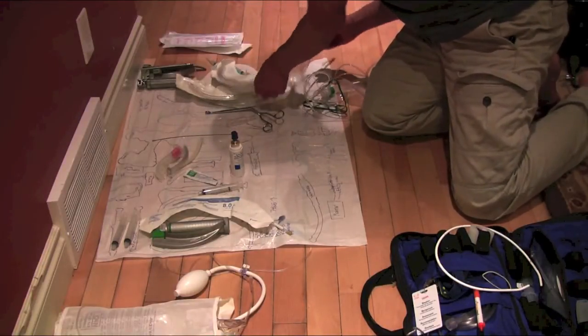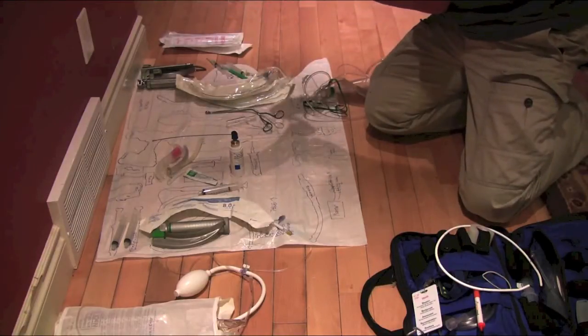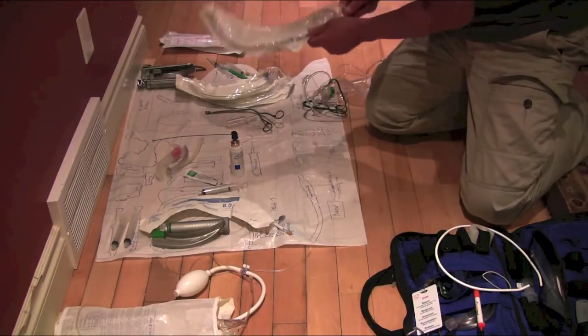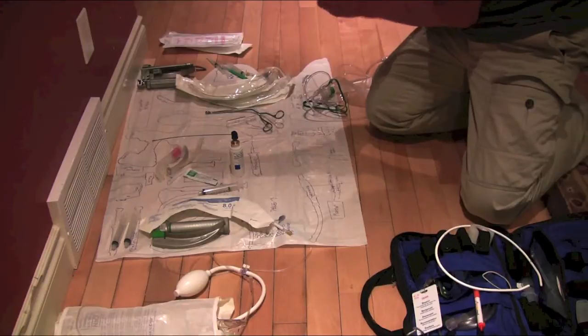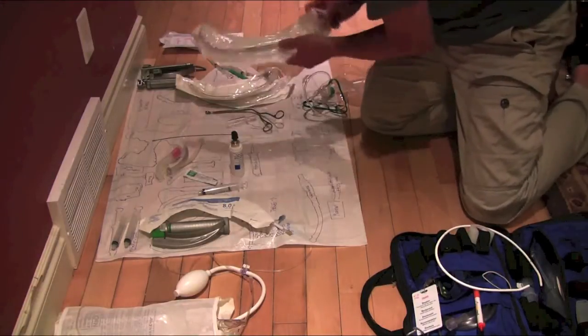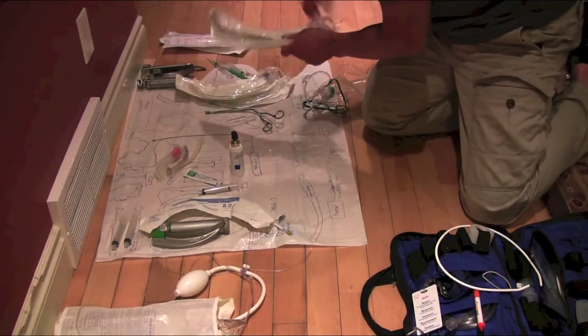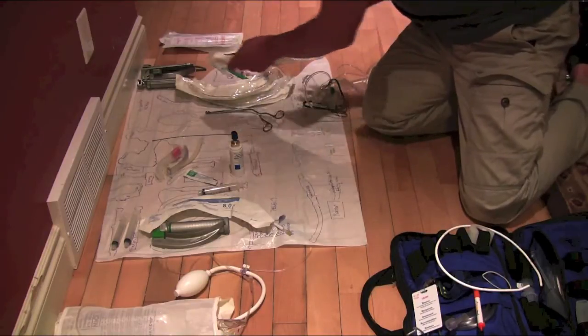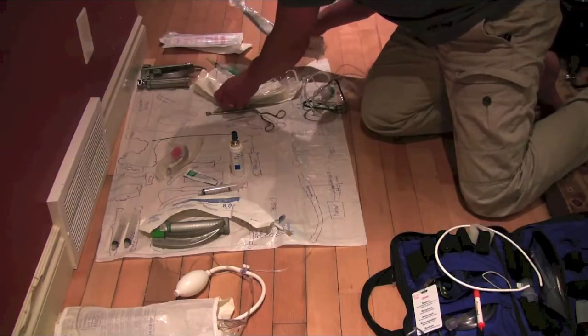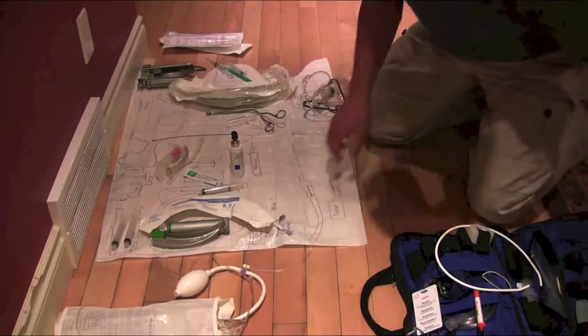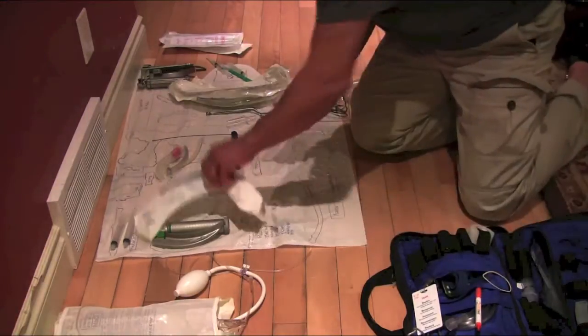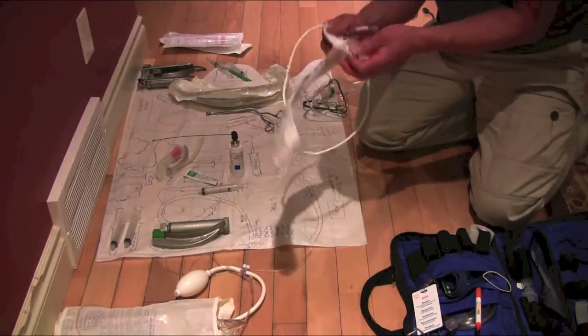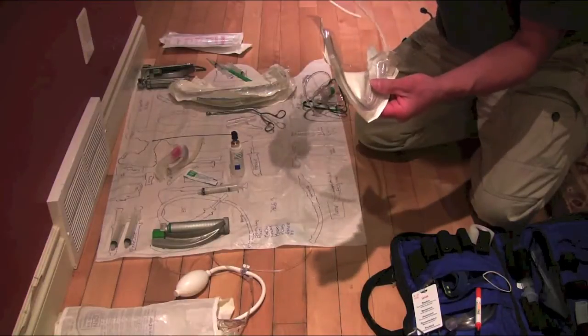I'm going to load up a stylet to the cuff on my 8 tube. Get my lidocaine, my lube, to lube it up there. Stylet to cuff. And I got my bougie. And that's in a dagger-grip fashion.